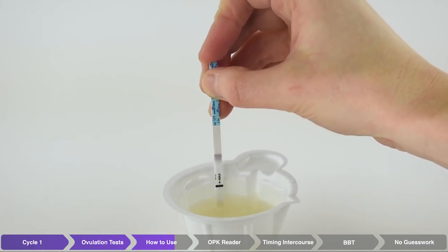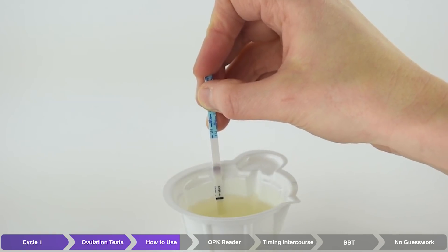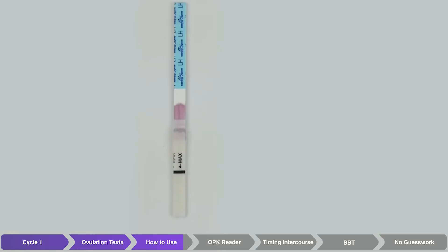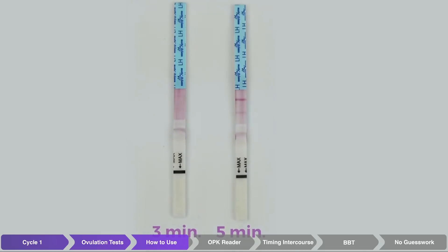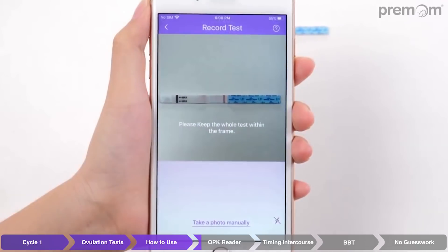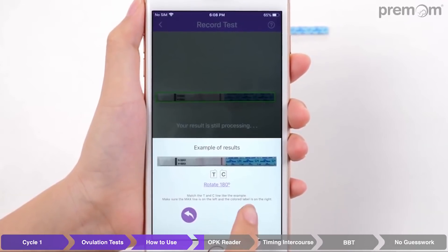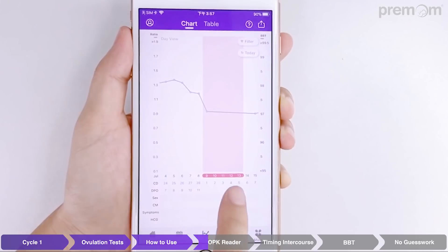You'll simply take a sample of your afternoon urine each day. Dip until you see the dye begin to rise into the test window, then lay the strip flat on a white surface and wait three to five minutes until any excess dye has finished clearing the testing window. After that, open the Premom app and use the automatic camera feature to take a picture of the test strip.